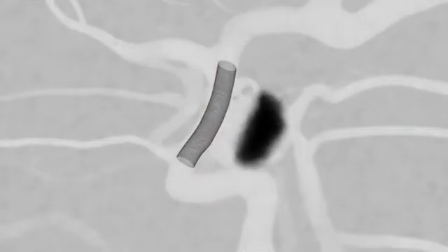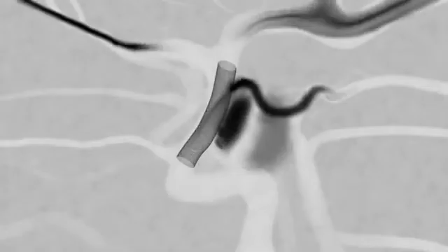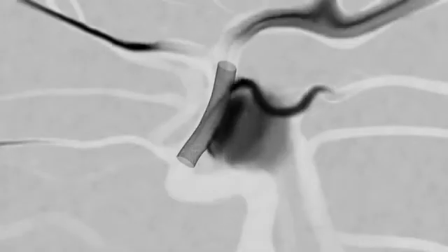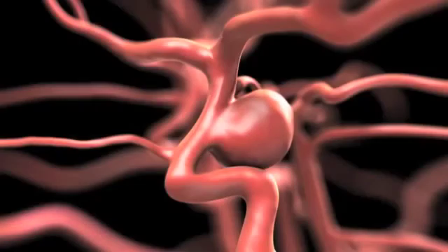In effect, the stent immediately causes stagnation of flow and decreased flow within the aneurysm, as you can see with the simulated angiogram.